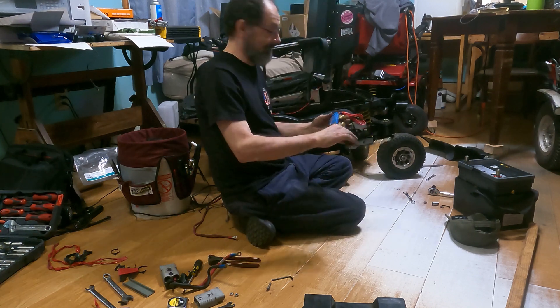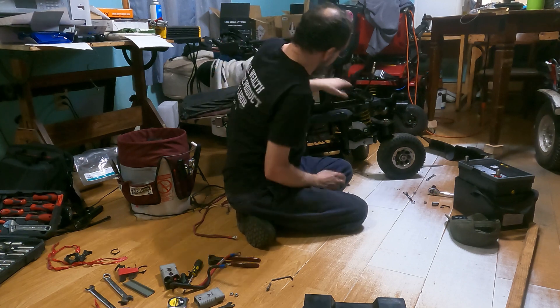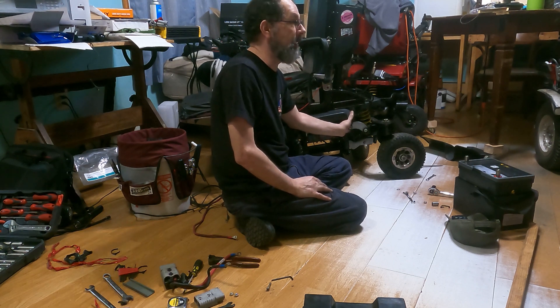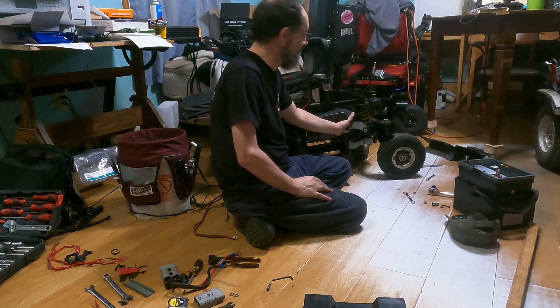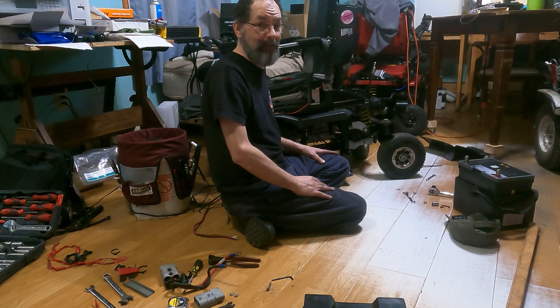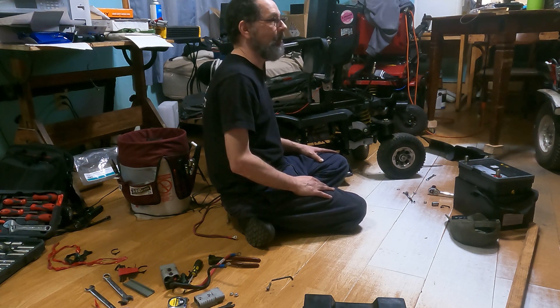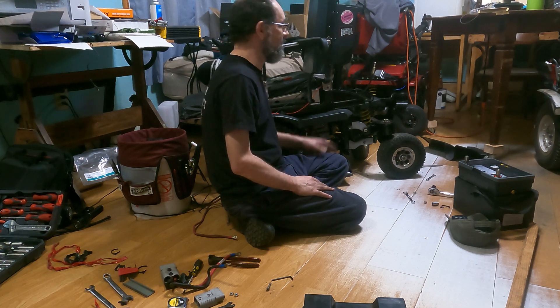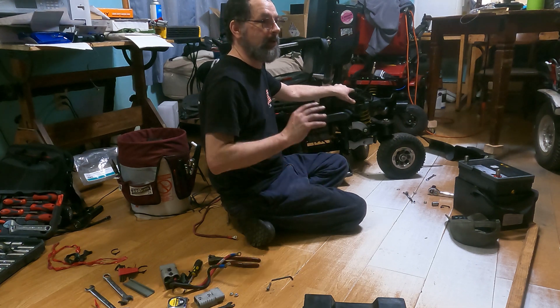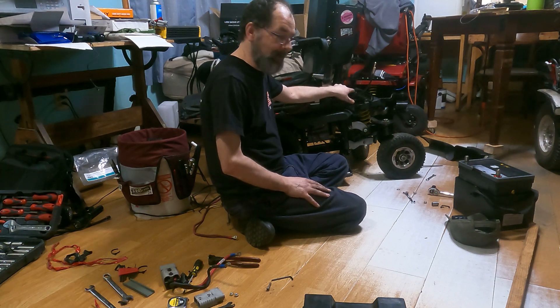What I'm deciding to do with the shunt: I took this cover off back here, we're placing it in here and wiring it down. The plug I removed will be back in here and tied up as best we can right now. This is just testing, so not everything will be perfect and permanently mounted, though it'll be secure enough. The shunt is all about being able to keep track of what's going on with these two batteries as we move forward.